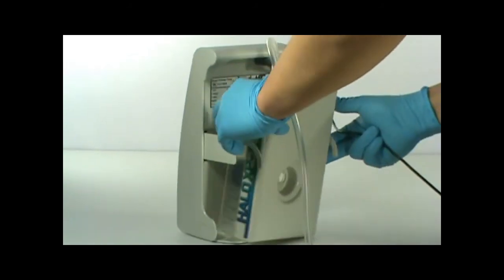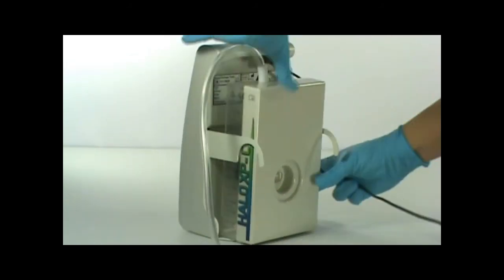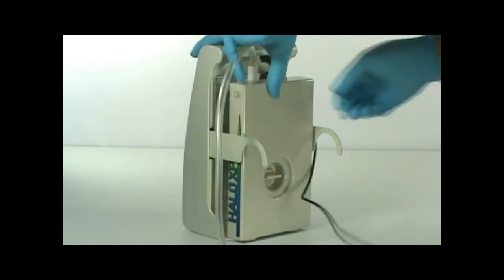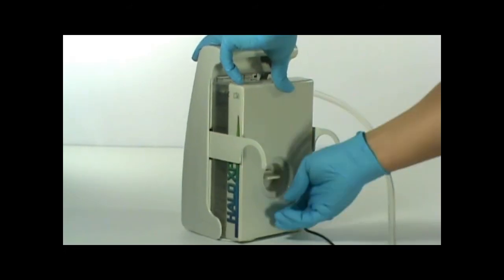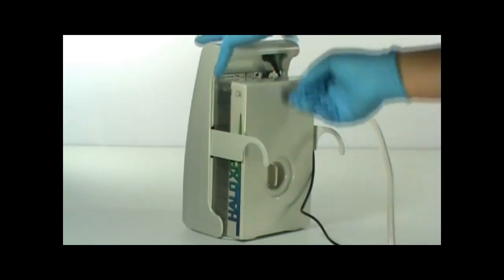Align the canister to the NPWT pump and press. Secure the canister by turning the locking mechanism like so.